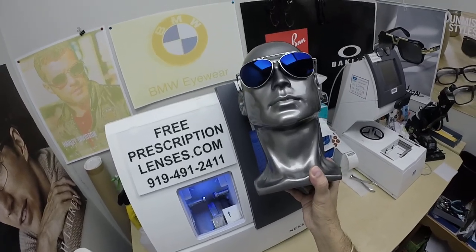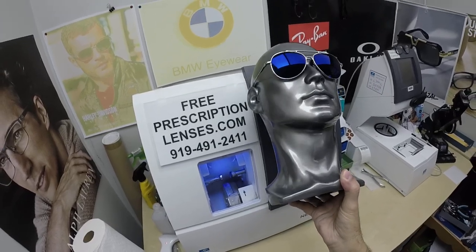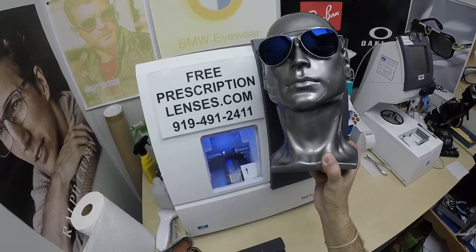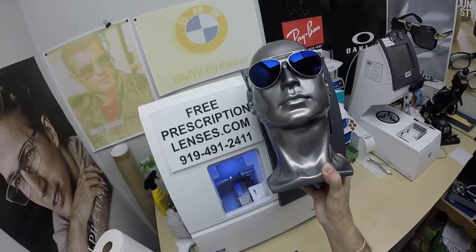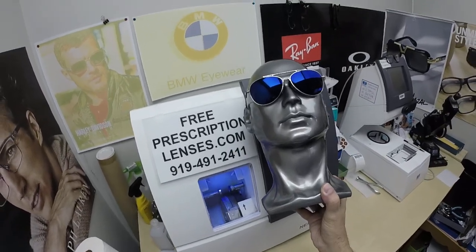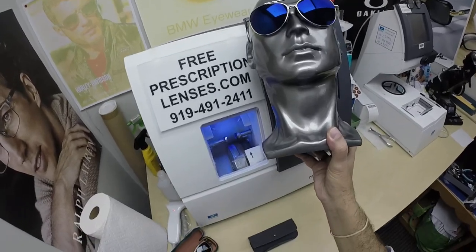The other thing about photochromic lenses: they're temperature sensitive, meaning they will get darker when it's 85 degrees and below than they will when it's 95 and above. But remind everyone — when it's 100 degrees outside, you're miserable, they're miserable. Nobody works 100% when it's 100 degrees outside; we all work much better when it cools off. These Zeiss Photofusion Extra Gray are designed for extra active people who spend extra amounts of time outside and will get darker in hotter weather.